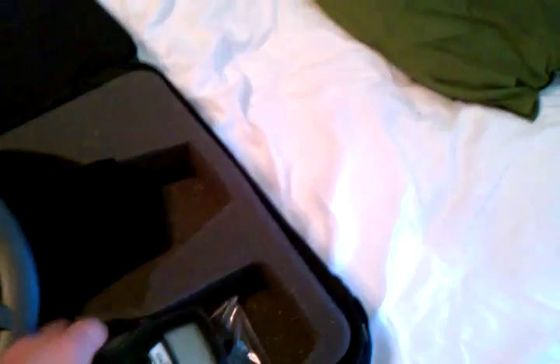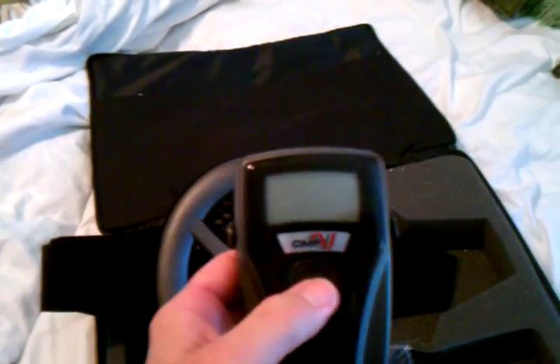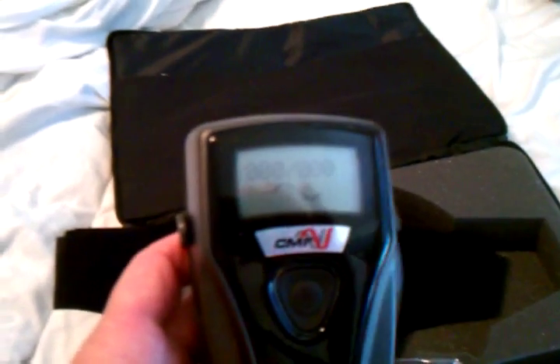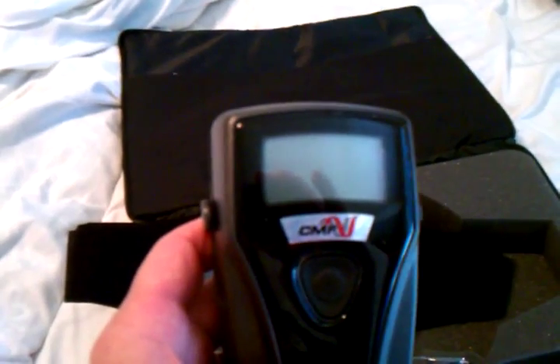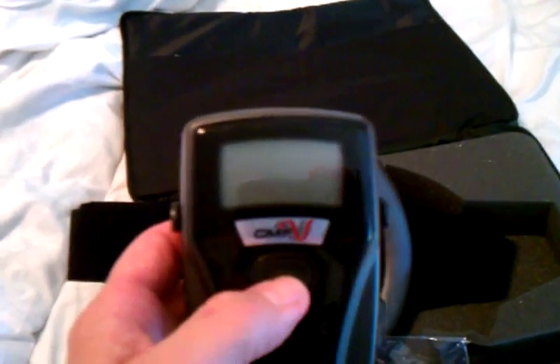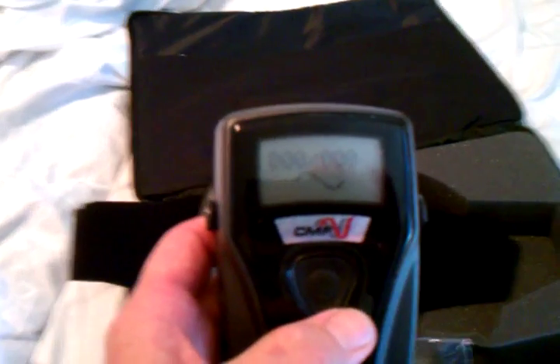It's got a little pillow there that goes where the curve of the neck is, and then you bring the straps around the front. You've got this little control box, and if you press it once — I just got it, so it's only going to show a little. One side is the number of days I've had the unit and the other side is the number of days I've actually used it, so the doctors can actually see how much it's been used.